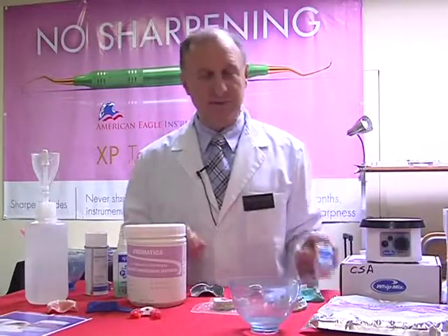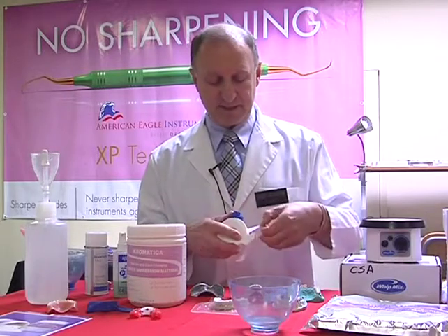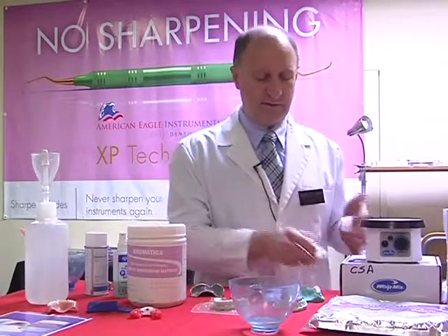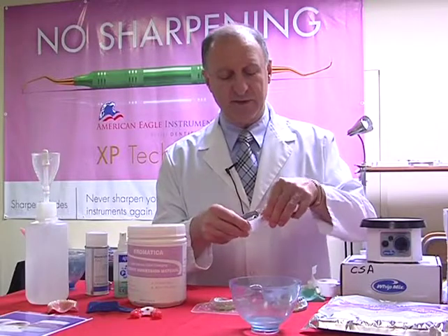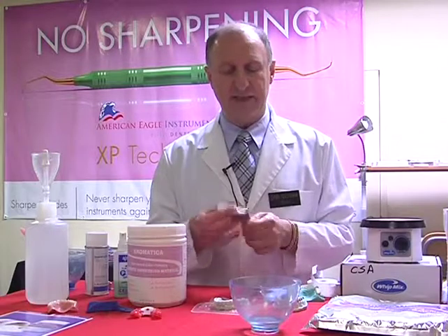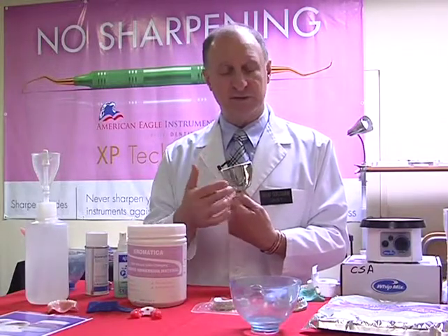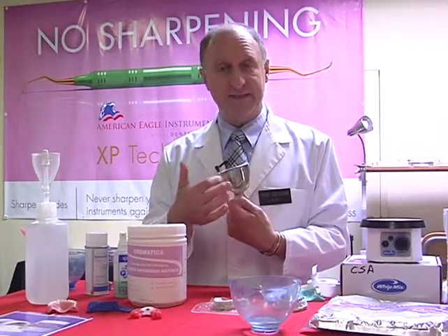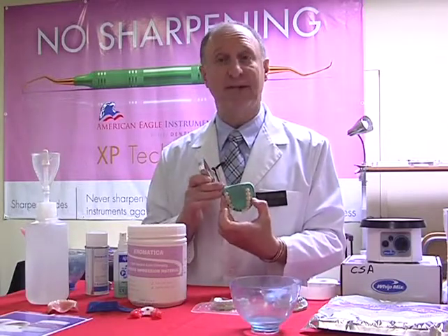I'm going to use a material called Damit. Damit is a great little material. It's actually a fiber-based product. I pull off a small piece of material, close this off, and then apply it to the posterior border of the tray. I then fold this over with a light pressure, and it's now sealing the back of the tray. In this way, it's going to hold the material within the tray, allowing it to compress more and pick up the distal areas, which are normally lost as the material drags or flows out the back of the impression tray.